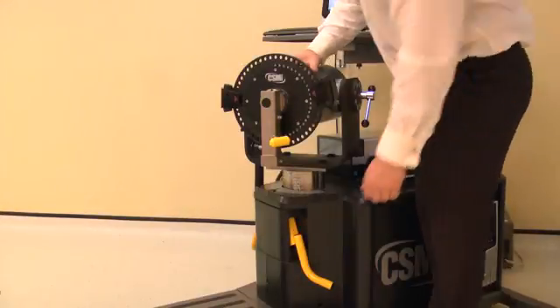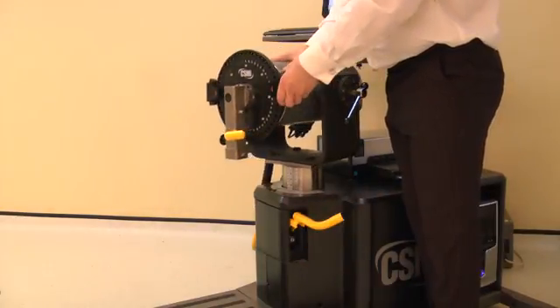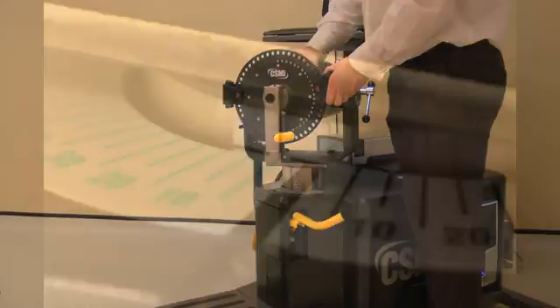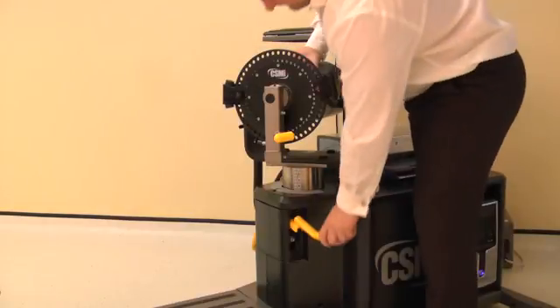The dynamometer height and rotation are adjusted together. Lift the locking handle to release. Rotate the dynamometer to 5 degrees on the green scale, then adjust the height to 0. Ensure both locking handles are pushed down to secure.